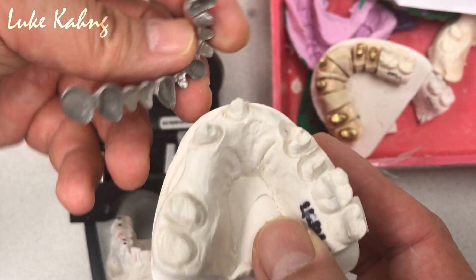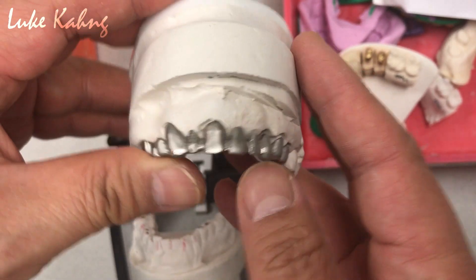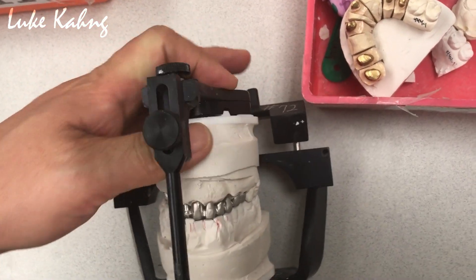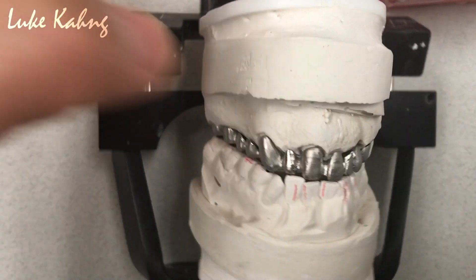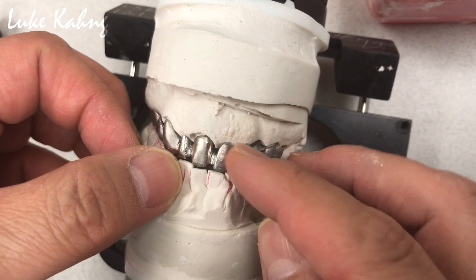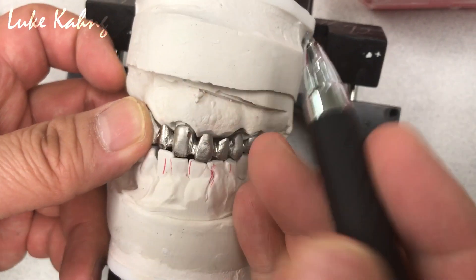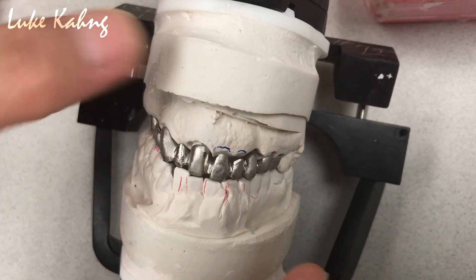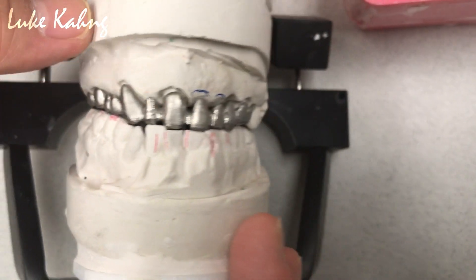There's another metal framework which Elvin did a nice job on, and they want me to evaluate it. Same thing — I bring it back to the dental articulation and check it. So we draw down about the midline to see the size of the tooth, which is great. You increase the level; central is good. Eventually I'm going to make the same contour about here, same tissue. Embrasure is good. Here there's a lack of room, so we're going to make a metal island, which is a great choice.